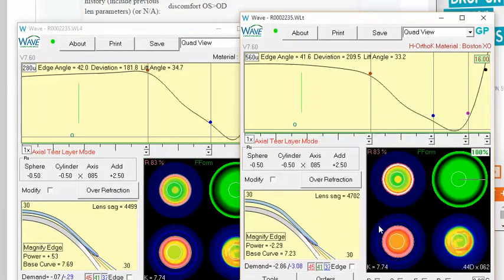When you double click on that that will load the fourth design into your current lens that you're modifying and that way you can resume changing that fourth lens however you want to.